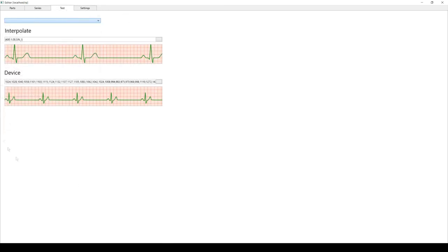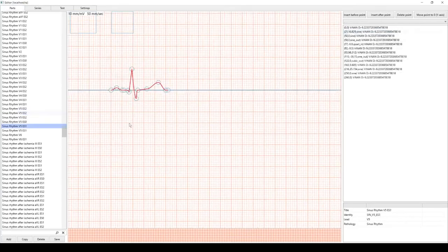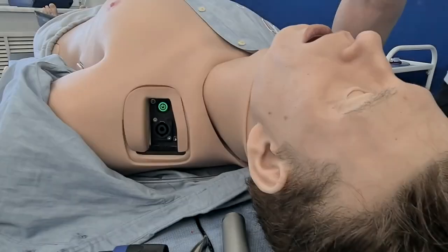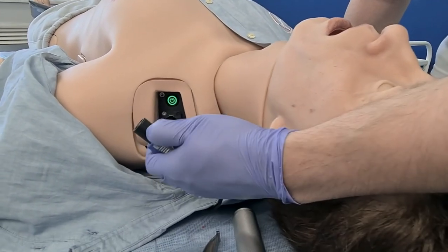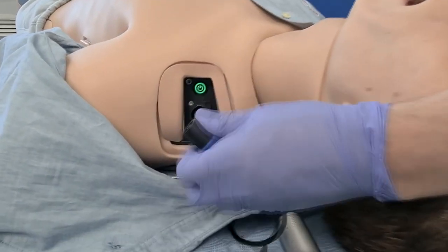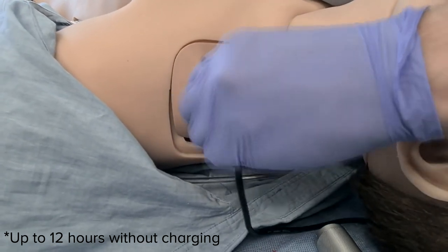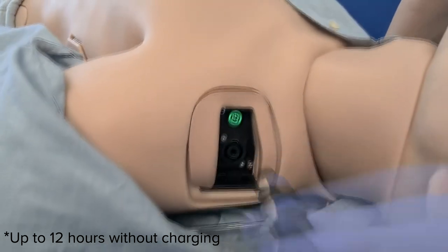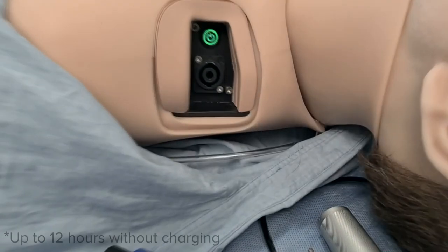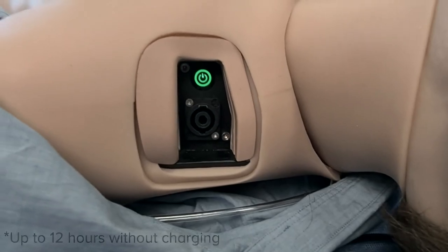For additional training on how to operate this module, please contact MedVision or a local MedVision representative. To charge your Leonardo, grab the connector — it has two parts of different sizes that you must align with the receiving end — then twist until it locks, pull the lever to remove it. The green LED signifies that Leonardo is on and operational.